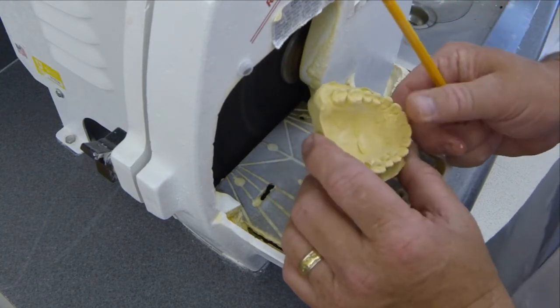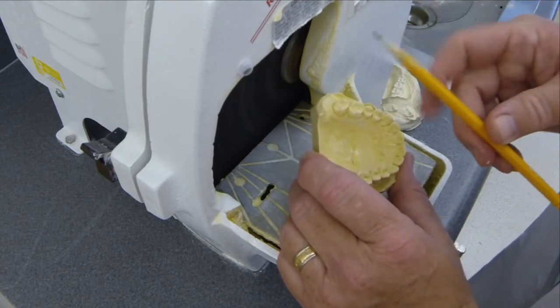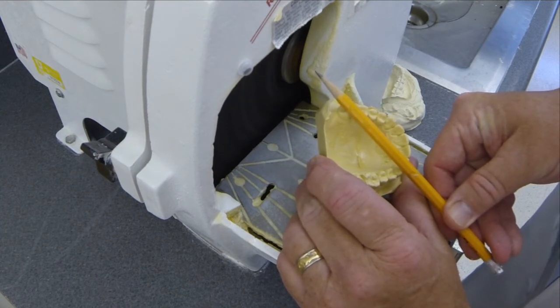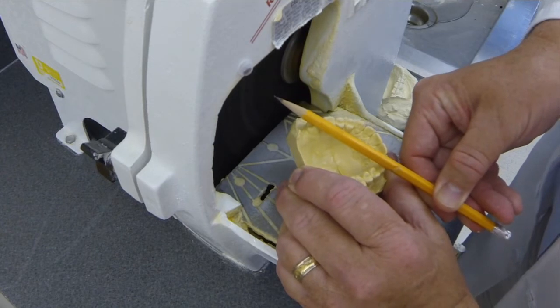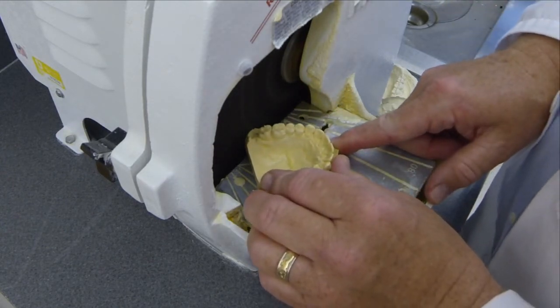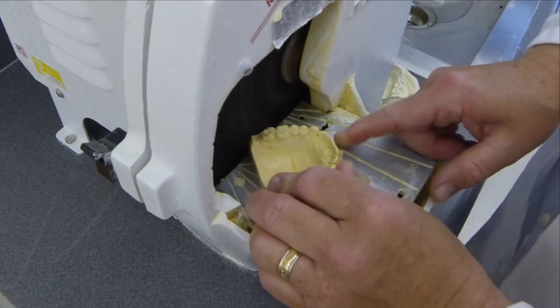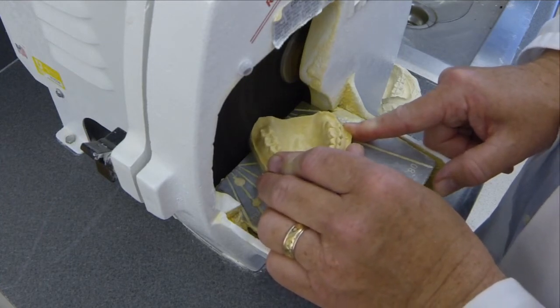Two other planes that I didn't discuss that are used in orthodontic trimming are a plane between the cusp tip of the cuspid and the second molar, and that will be perpendicular to the blade of the trimmer and will give us the posterior trim position. We'll do that on each side of the arch.